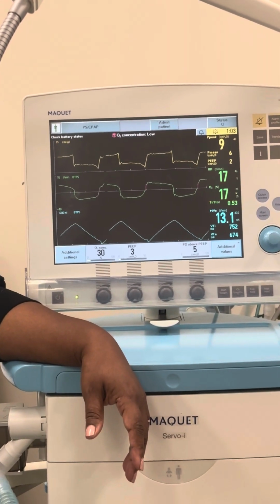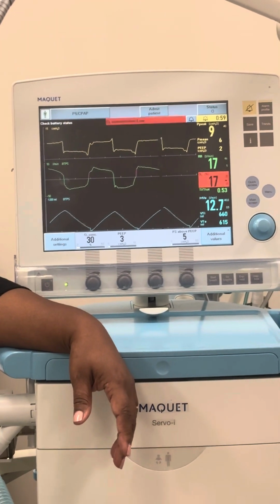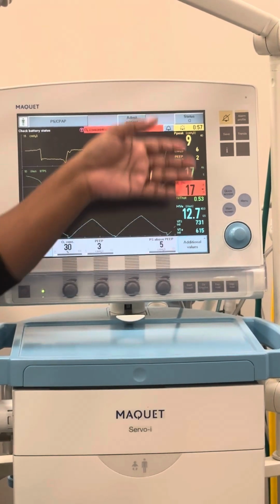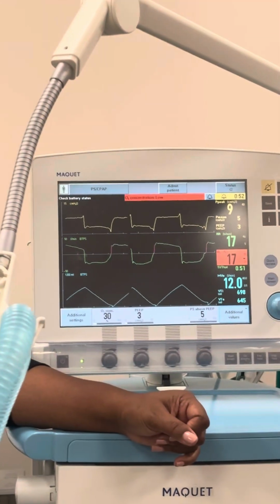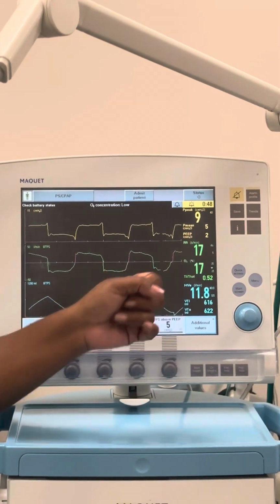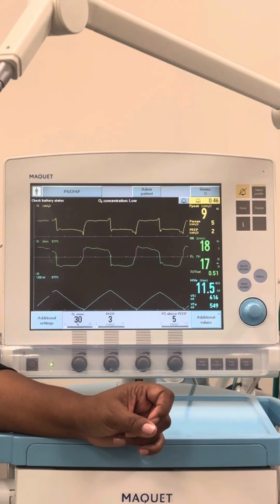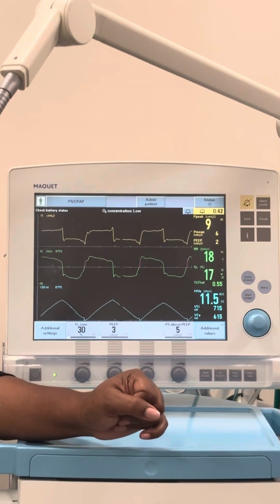And we never did find the thing for this one, did we? The connector for the bigger tube. I'm going to have to just probably tell y'all what some numbers look like over here to make them good, so y'all kind of know what to look for. Just make sure you read every single thing, top to bottom, left to right. Right? All your settings, read them. All your monitoring, read it. Know your parameters that you're going to check.